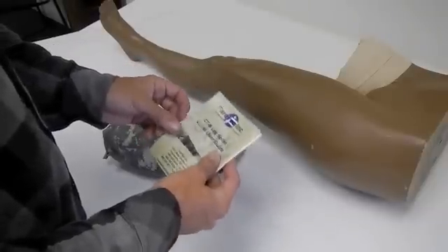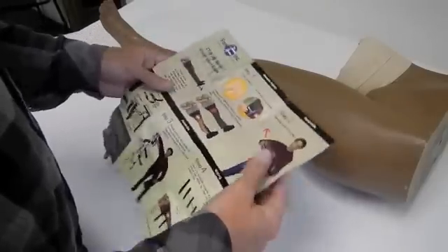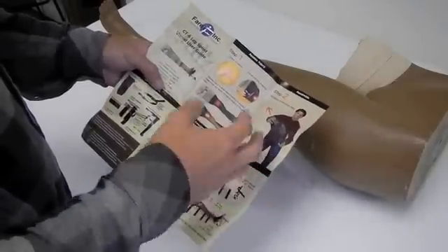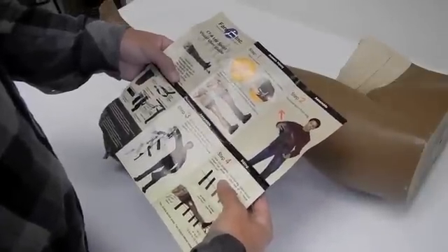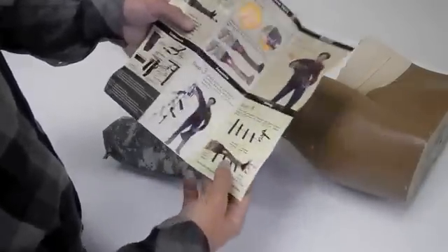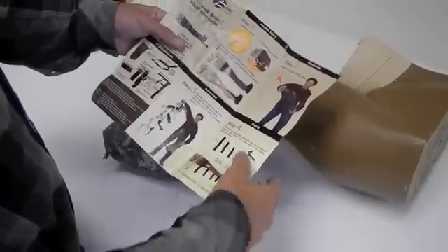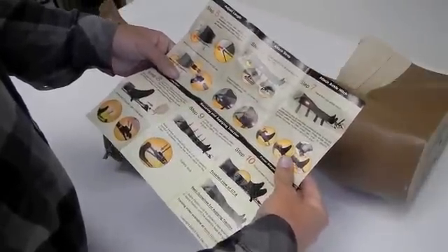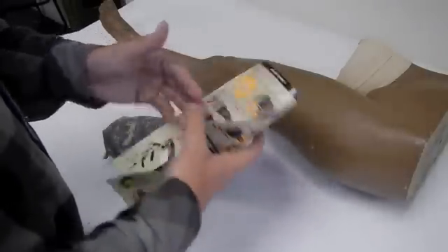Here we have a visual user guide that is included with every CT6. The material it's made out of is waterproof and tear-resistant, so it's durable and will last a fair amount of time. The idea behind a visual user guide is that you don't necessarily have to read every step to understand what it's trying to convey. You can see a picture of the guy removing it from the bag, visually how the splint is supposed to go beyond the bottom of the patient's foot, all components pictured step-by-step. It really explains easily in pictures, so even if you speak another language you can still understand it.